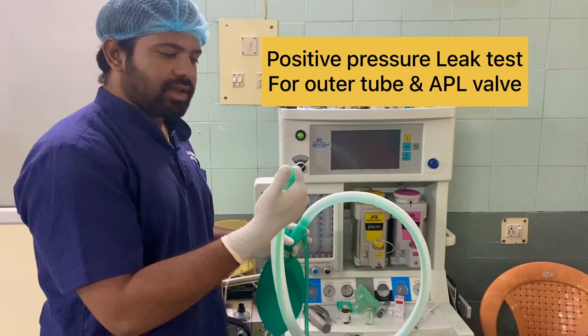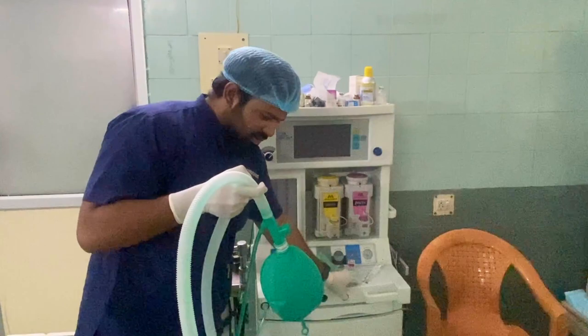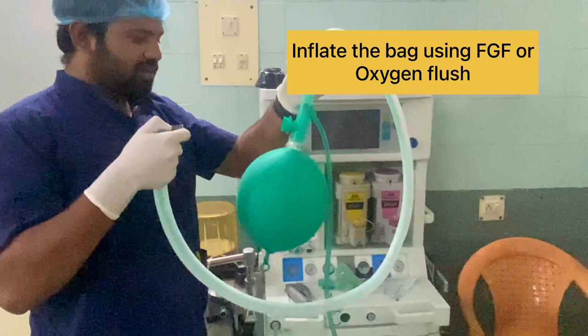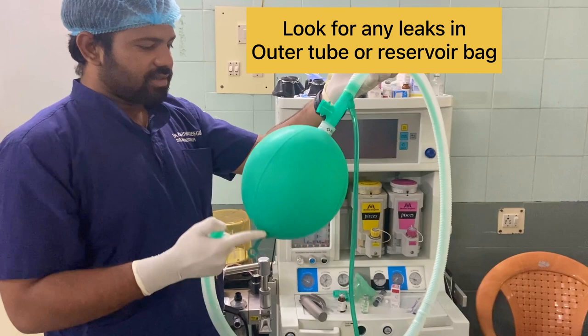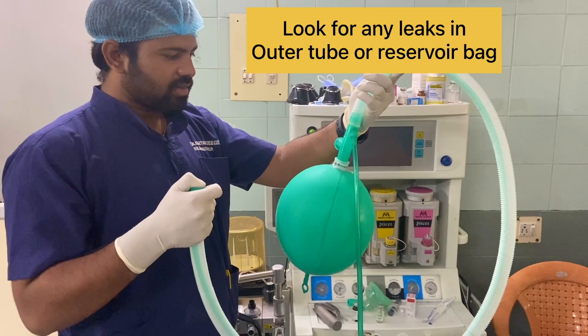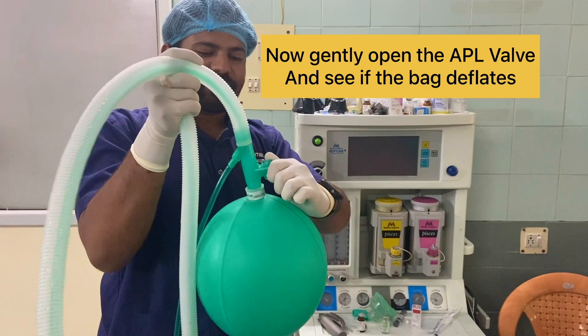The positive pressure leak test checks the patency of the outer tube and APL valve. Close the outer tube with your thumb, close the APL valve completely, then inflate the bag using fresh gas flow or an oxygen flush. Wait 15–20 seconds and look for any leaks in the outer tube or reservoir bag. This confirms patency. To check the APL valve, open it and observe that the bag deflates.